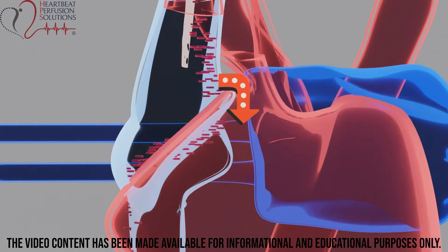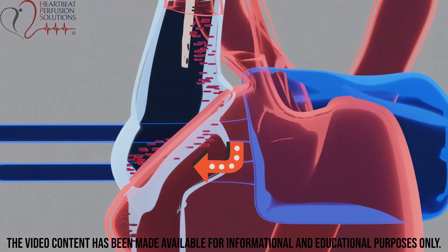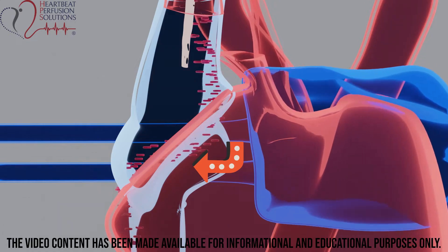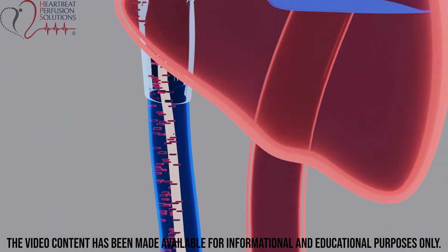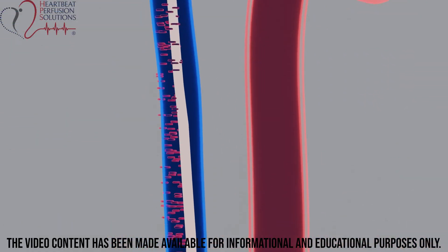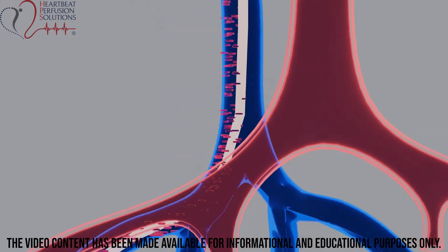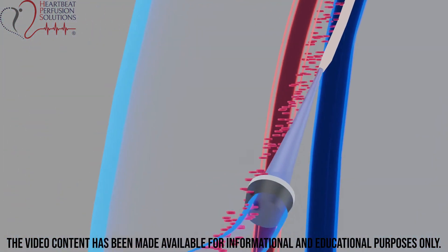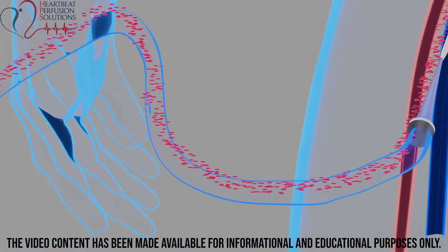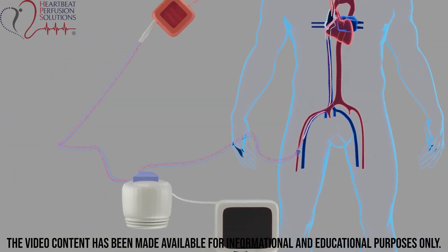Recirculation only occurs when oxygenated blood from the circuit is inadvertently routed away from the right atrium's tricuspid valve back to the inferior vena cava. The blood then re-enters the circuit's venous limb, bypassing the native systemic circulation pathway.